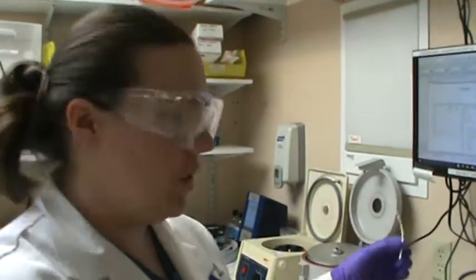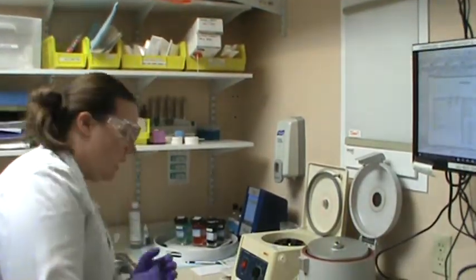Okay. I'm just going to throw this in the trash because we don't need it anymore. So that is how we look at the chemical observations of our urine sample. If you just give me a moment, I'm going to get all my supplies ready. And to continue on with task 20, we're going to be doing a urine sediment in-house.